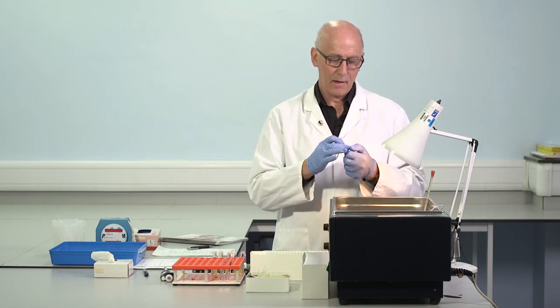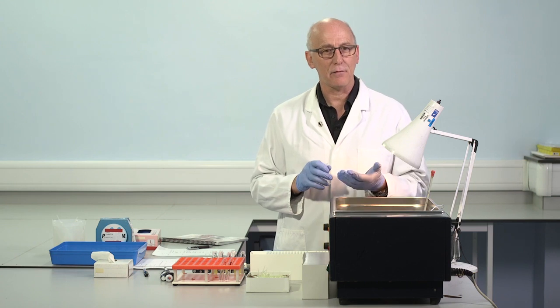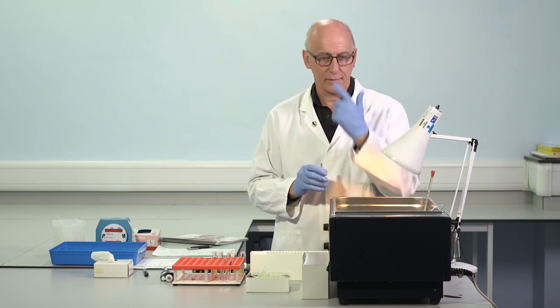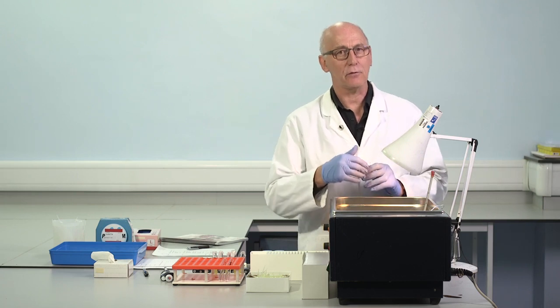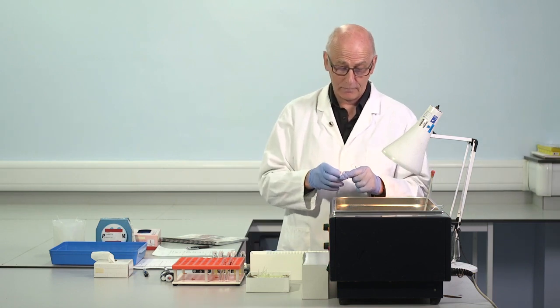secondary vial. If we were working in the water bath now for 2, 3, 4 hours, then there is the potential at 37 for evaporation, and that can change the concentration of the reagent. That can change the performance and stability of the material. So we should cap the vials if the material will be in the water bath for any length of time. And this can be done with plastic lab film, for example.